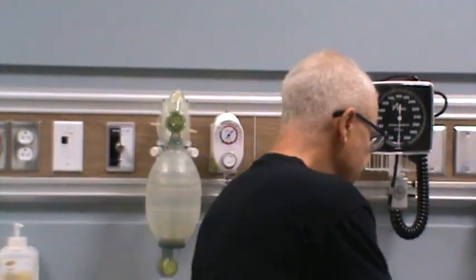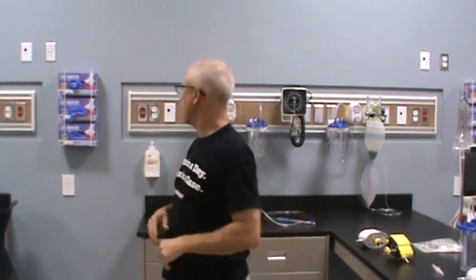Whenever you're dealing with secretions from a patient, always make sure that you're wearing the appropriate personal protective equipment — the PPE — designated for that patient with their infectious precautions. It's a means of protecting yourself and protecting the patient. You should have gloves on when doing that, so I'll grab a pair of gloves.